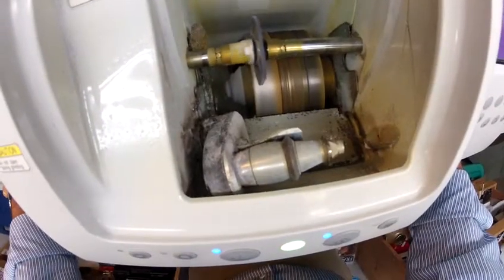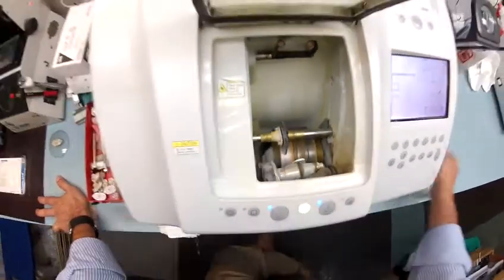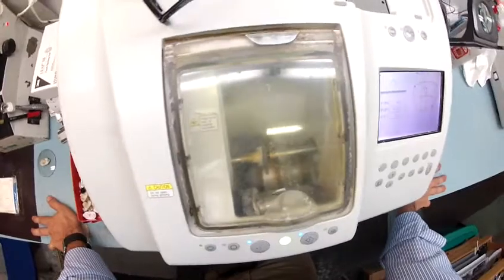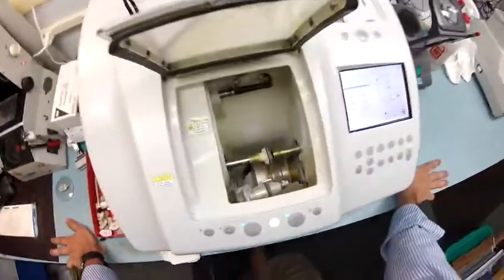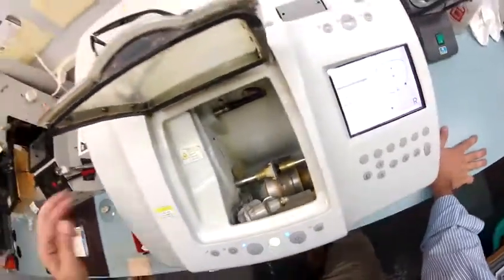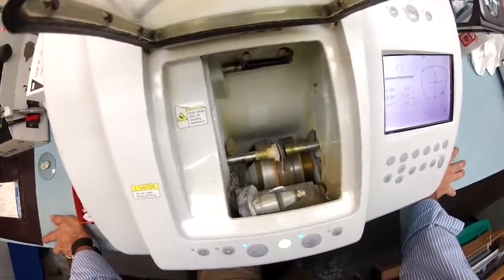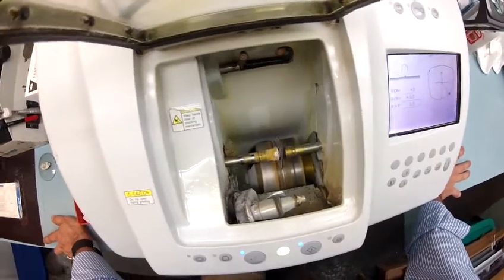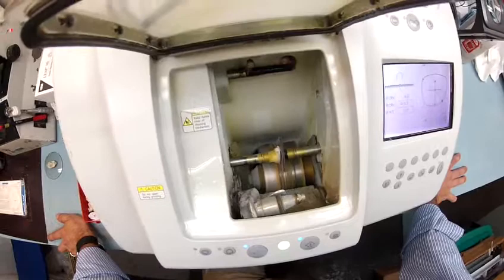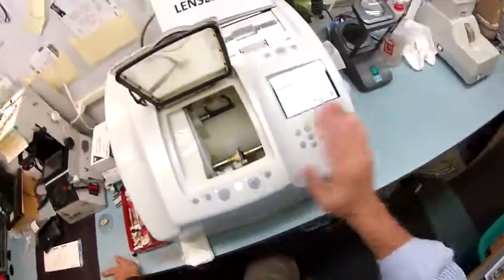If you notice, your lens is completely flat at the edges — if I were to take it out it would stand up on its own like a nickel. But I won't take it out; I'm going to wait for the bevel to go on. These are the same high quality ophthalmic lenses I would put into prescription frames. Now, polycarbonate cuts dry where plastic and high index cut wet. There will be water jets that kick in in just a moment, but only to wash away any optical debris in the final stage of the cutting process. There go the jets. This whole machine costs about $30,000.